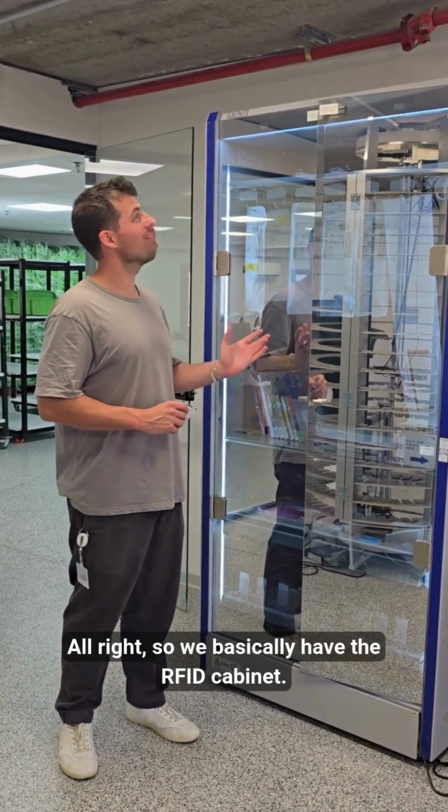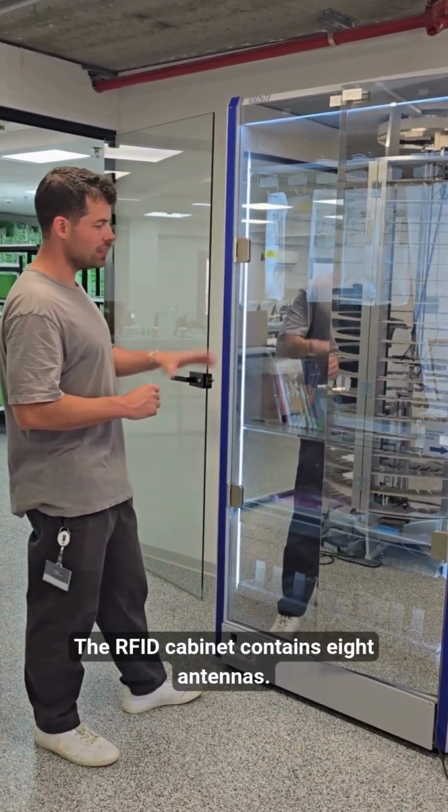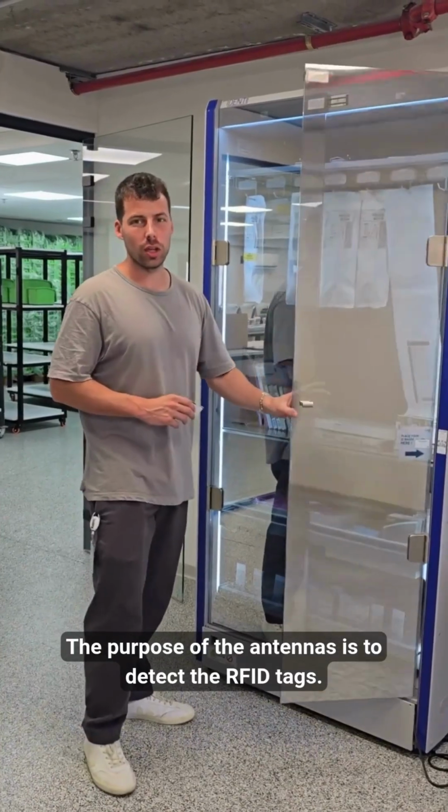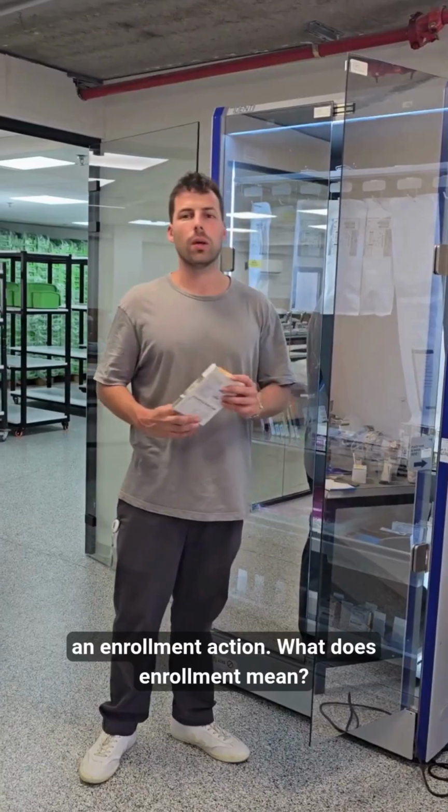Alright, so we basically have the RFID cabinet. The RFID cabinet contains 8 antennas. The purpose of the antennas is to detect the RFID tags. The initial step in the process is that the supplier performs an enrollment action.